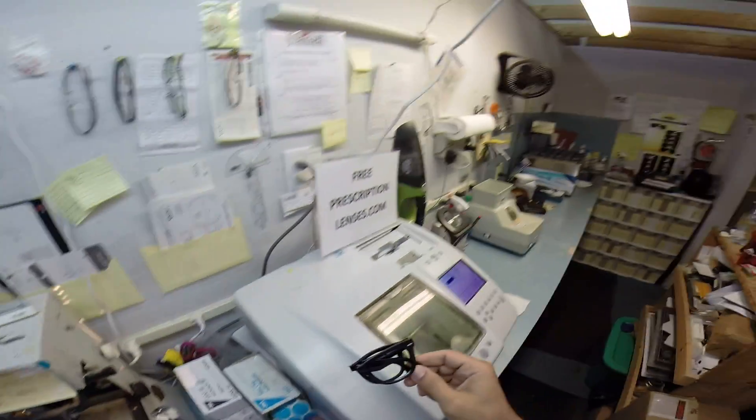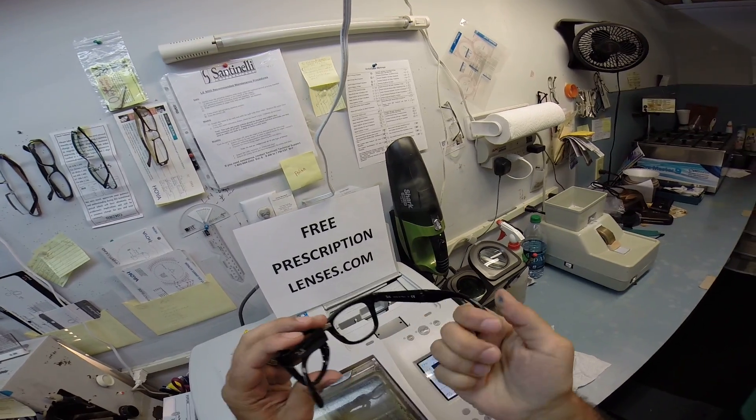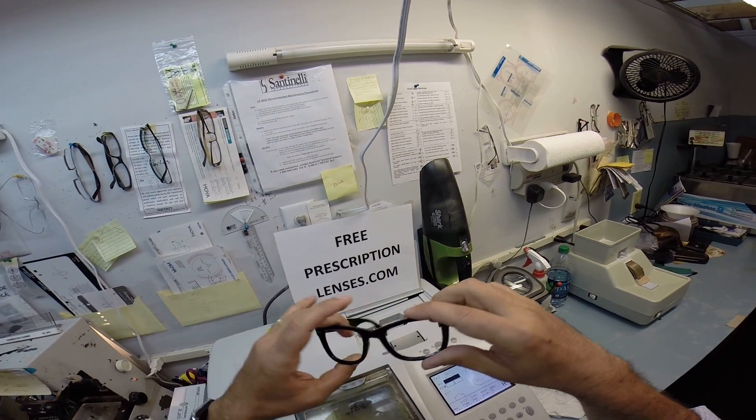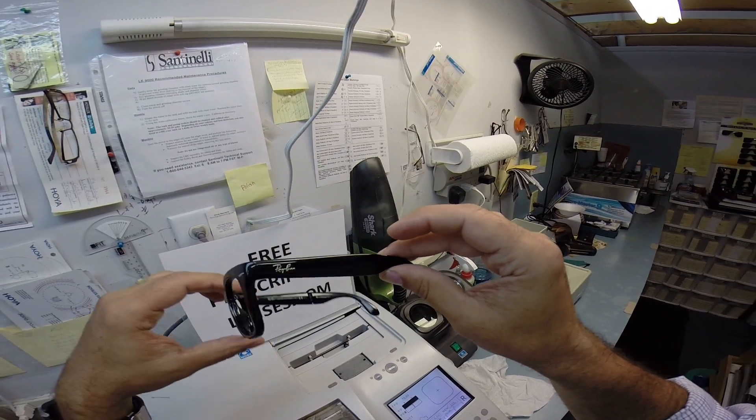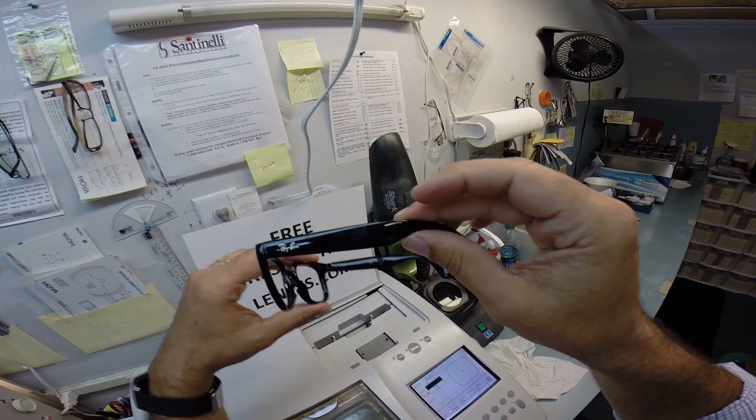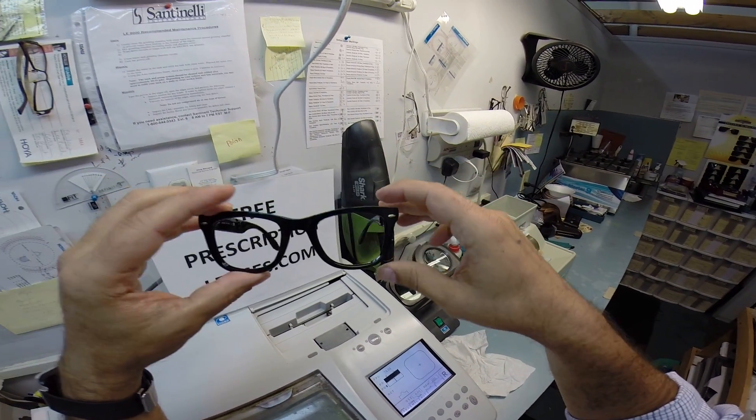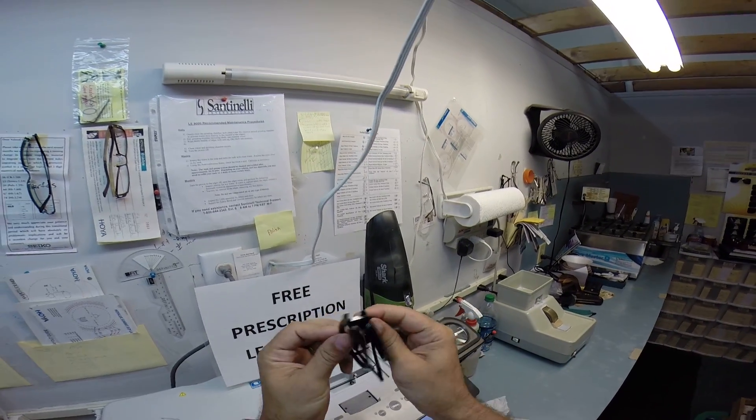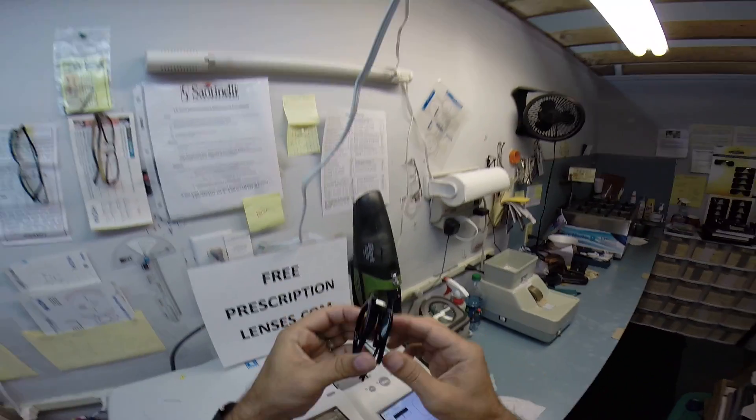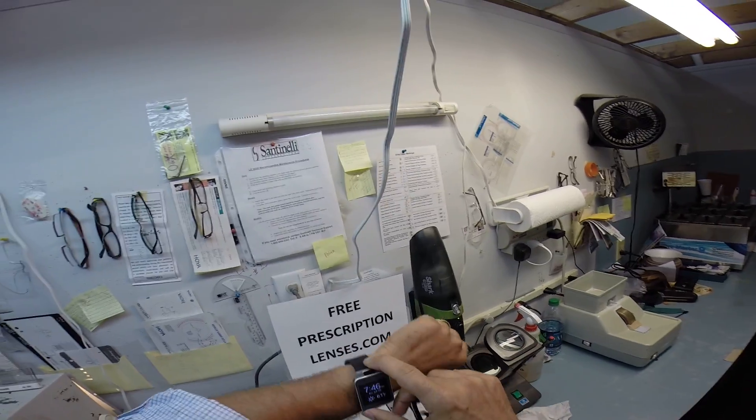Let me put all that down. It came in in the shiny black. So the person I spoke to on the phone at Ray-Ban said this was a matte black, of course they were just looking at the picture. But you got what you wanted, the classic shiny black. And your doctor's office said they couldn't put a prescription in there. Well, give me 15 minutes.